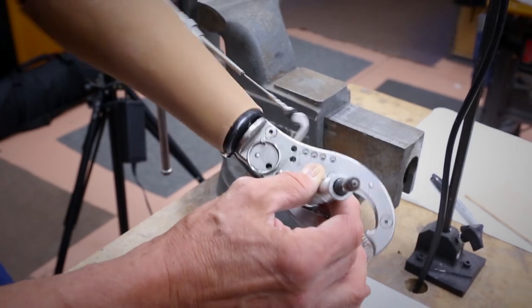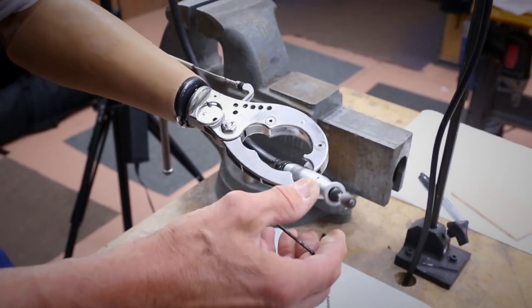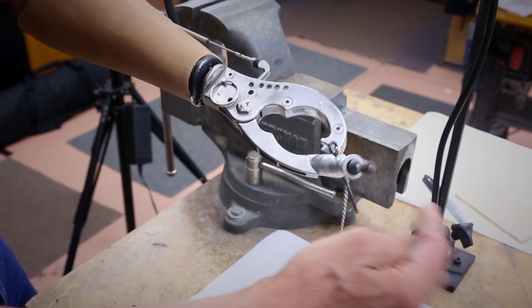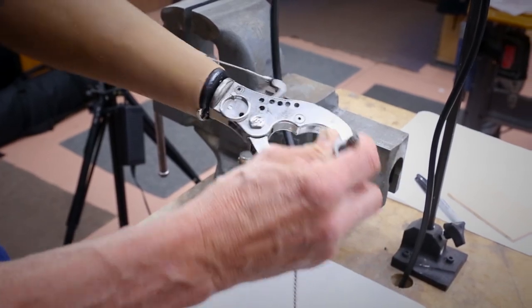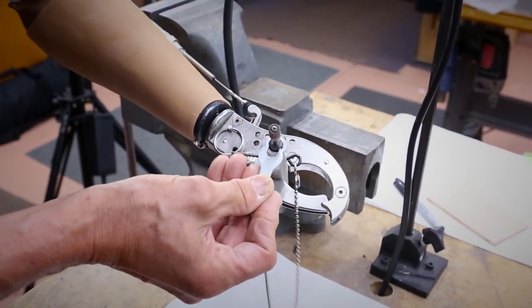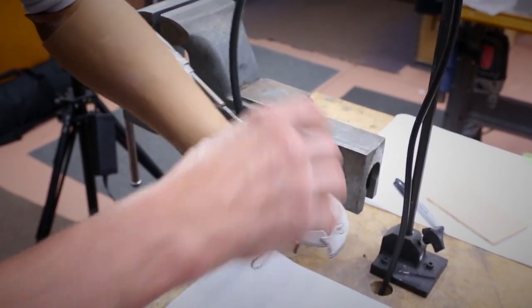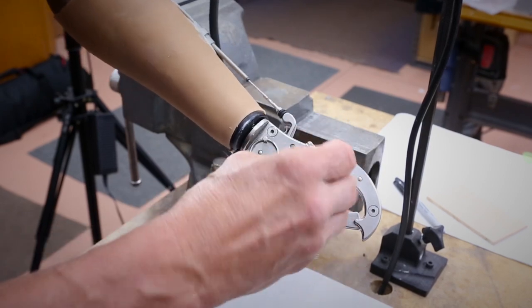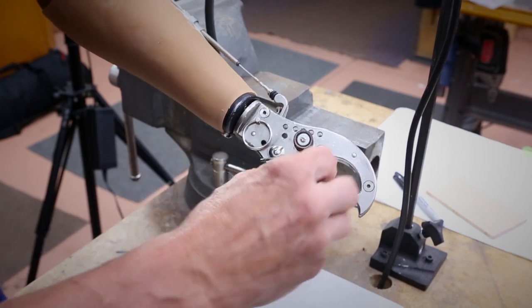I'm going to illustrate again the versatility of a grip terminal device and manipulating tools. I'm going to do a little tool changeout here, inserting a little pin through this lock system, grabbing on, and then unlocking the chuck.